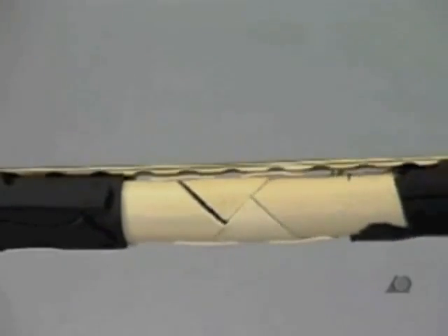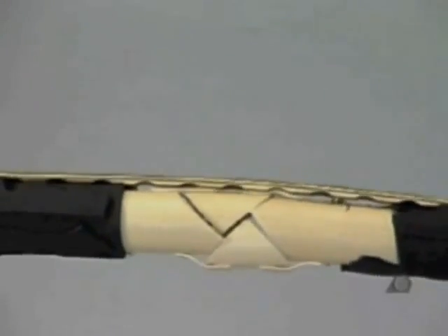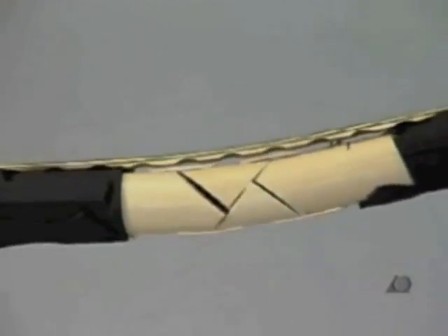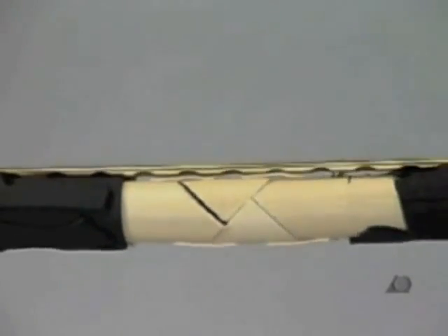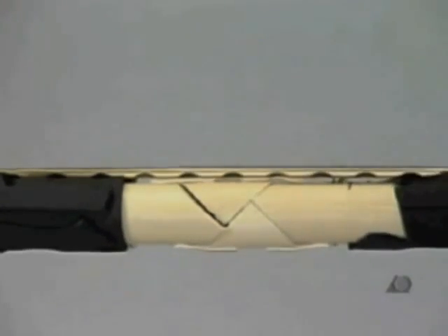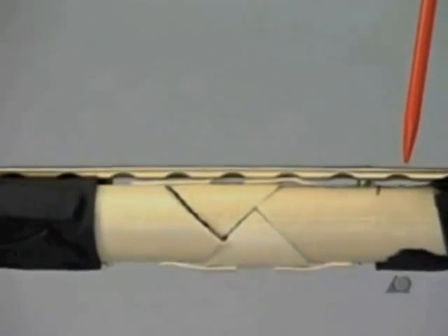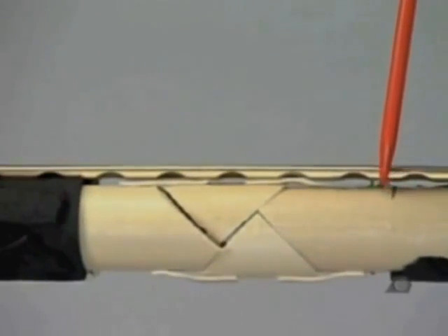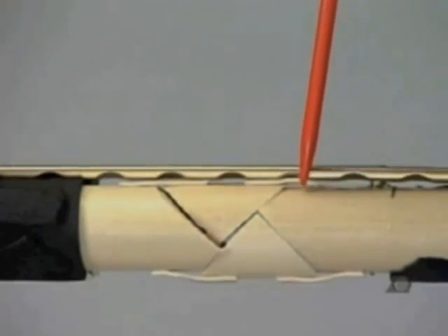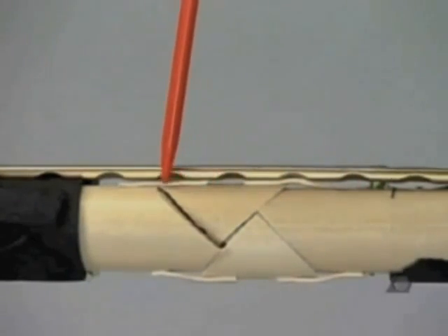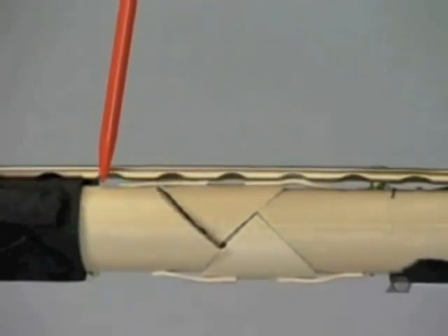Removing the outer foam layer shows that relative stability is achieved with no compression of the plate on the bone and no interfragmentary fracture compression. The fracture area has been bridged by the plate.